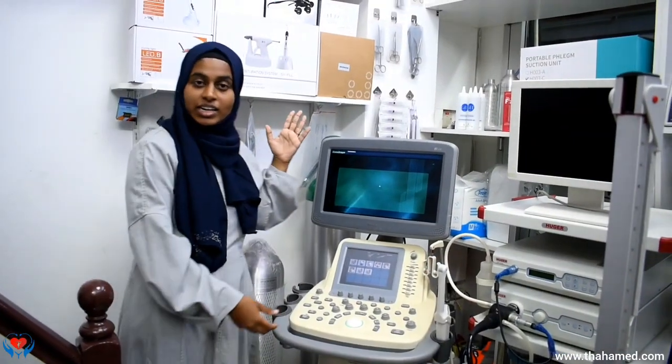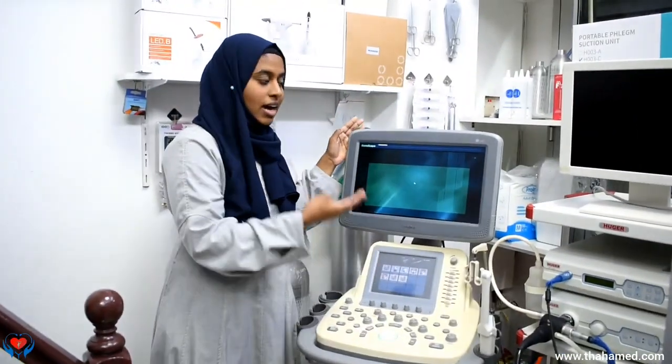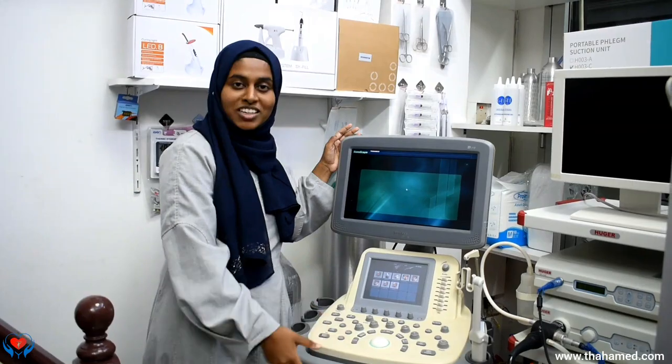This is the basic outline about the Sonoscape S20 ultrasound machine. Hope you all understood. Thank you.